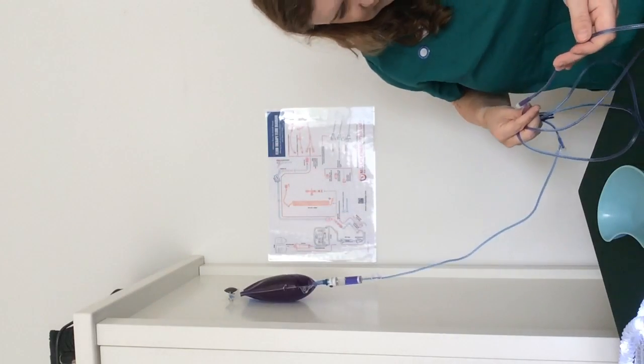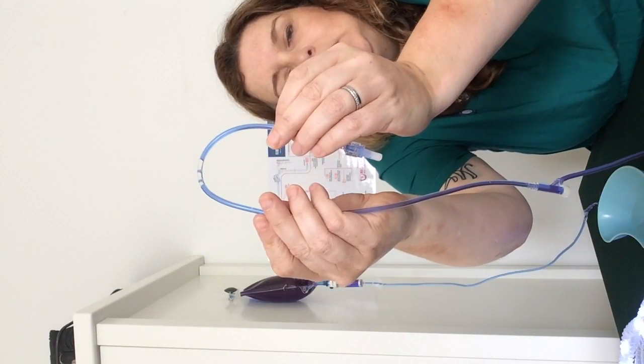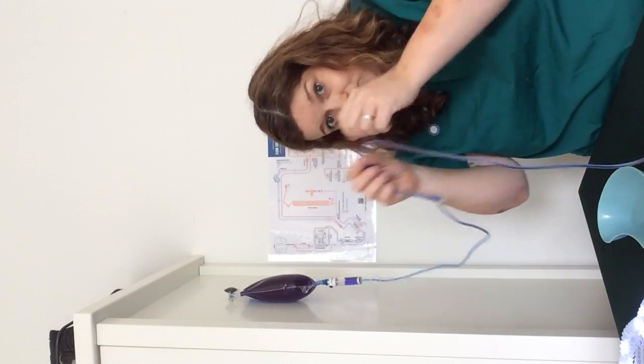Nothing other than just a couple of little ones — oh, no biggie. You can see that's about three bubbles in one, so we're going to want to get rid of that. But essentially they're all going to come out because I'm getting rid of this one now.